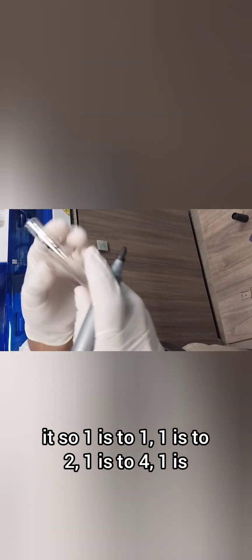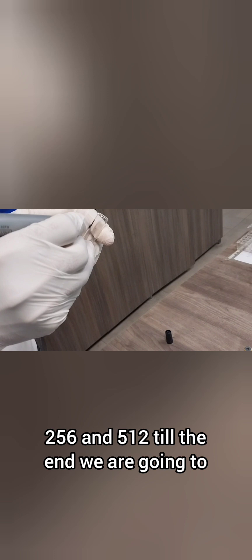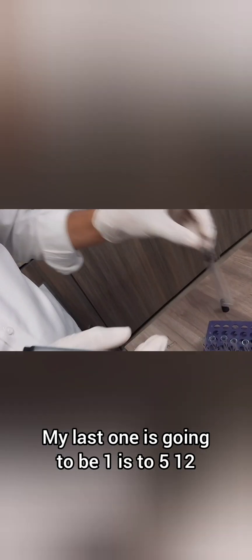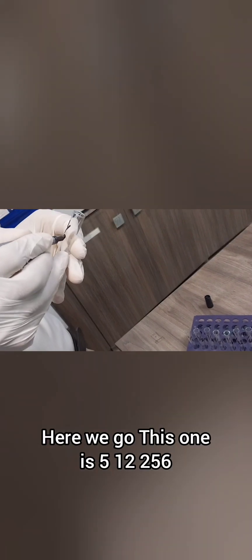So 1:1, 1:2, 1:4, 1:8, 1:16, 1:32, 1:64, 1:128, 256, and 512. We are going to label 10 tubes. You might as well label the last tube as 1:1024, but I'm not doing it in my video this time. My last one is going to be 1:512.